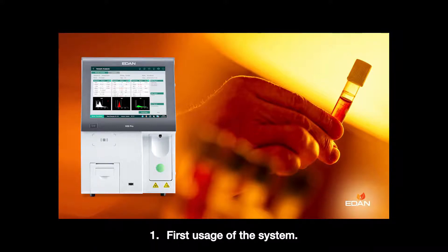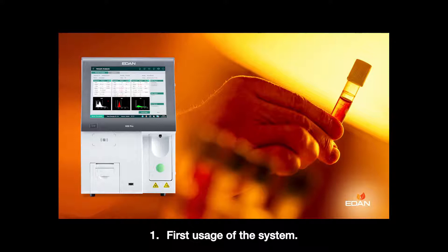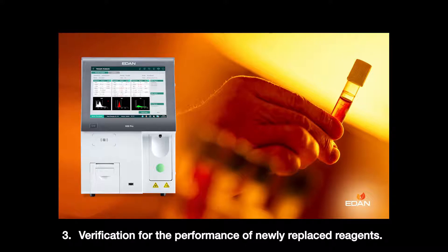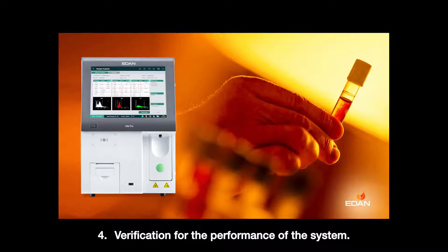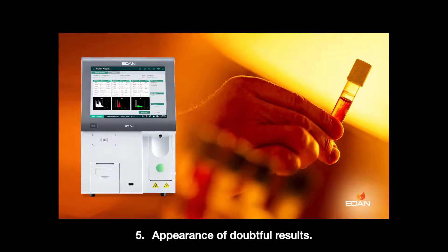1. First usage of the system. 2. Daily operation after turning on the analyzer. 3. Verification for the performance of newly replaced reagents. 4. Verification for the performance of the system. 5. Appearance of doubtful results.